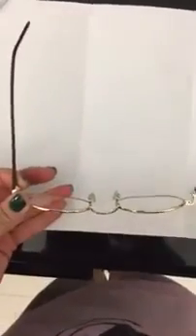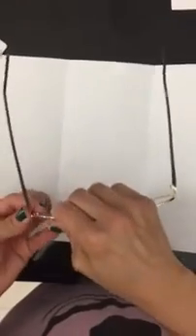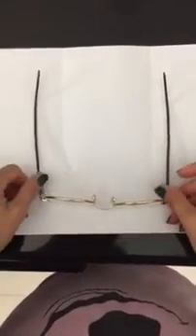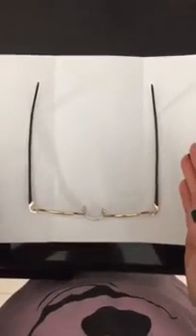Our end pieces, if they're too further out, you will notice this will affect eventually when a patient puts it on. One side of the face is going to be closer on the glasses than the other. You correct that by closing it back in, using pliers, of course, much easier on the fingers. And you want what I call a U. You want about a 90-degree perpendicular here on the frames on the table.